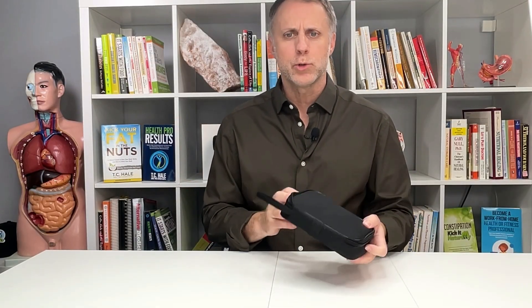You may have seen that we have other videos on how to correct issues like anemia, but you may have also seen that I have an iron overload issue — a hereditary problem called hemochromatosis — where my body absorbs more iron than it should, and as iron accumulates it can really create a lot of inflammation and a whole lot of problems. I found this really cool at-home tool that allows a person to check their hemoglobin levels.